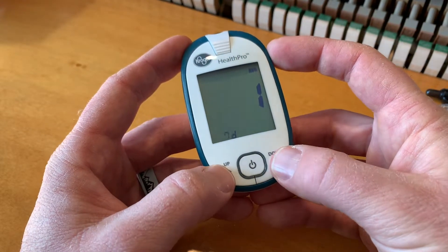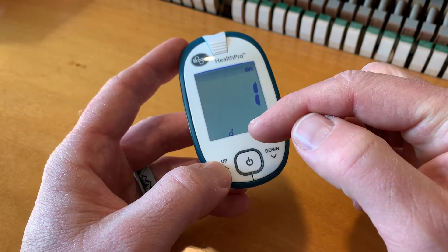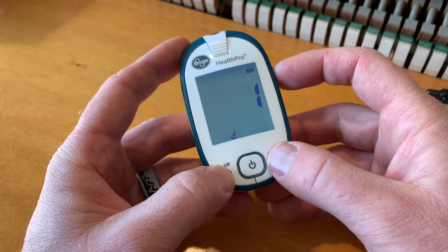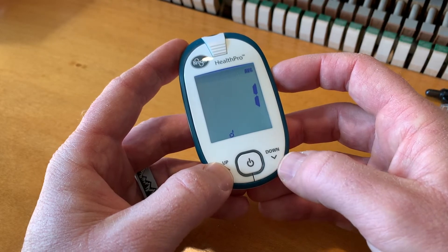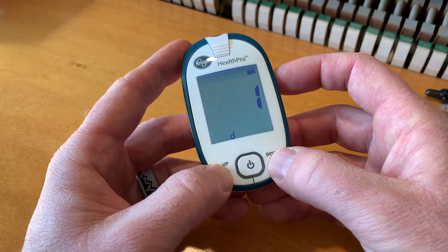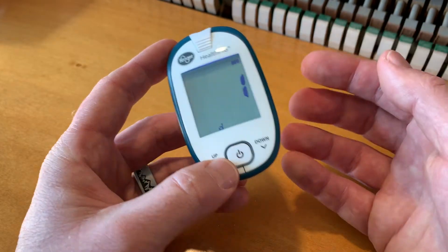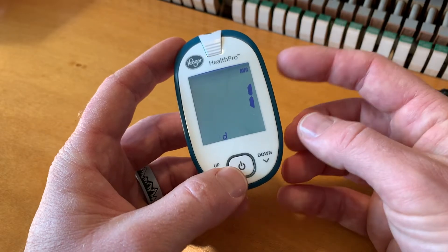Now we come to the averages. What we can do is look at the averaging for the amount of days. I want to see what my average is for seven days. If you just want to do it for a single day, you can do that — it'll go all the way up to 99 days. I want to keep it on seven days, that's a single week. This is something you need to consult for yourself and with your doctor.